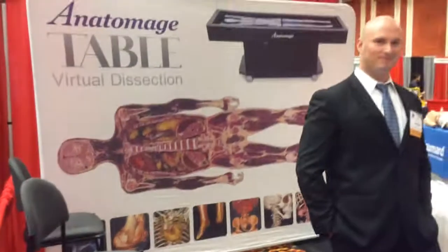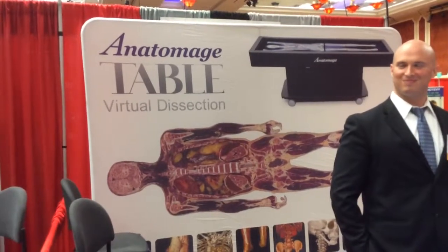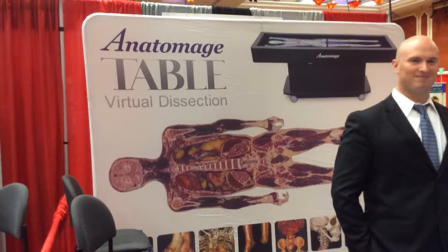I'm at the National Association of EMS Educators Conference, and I'm at the Anatomage table virtual dissections.